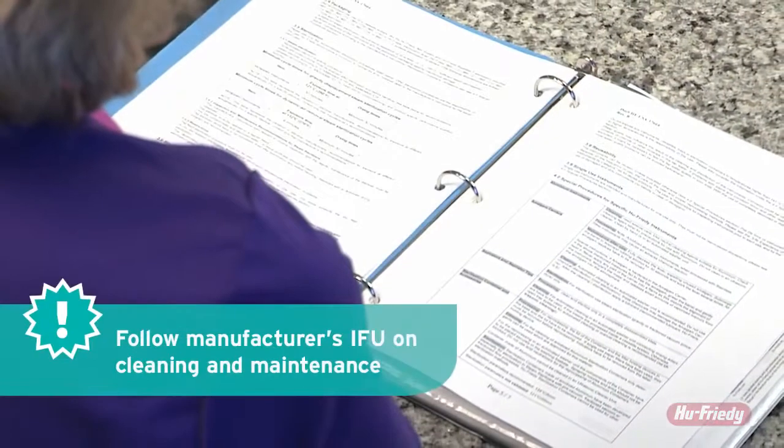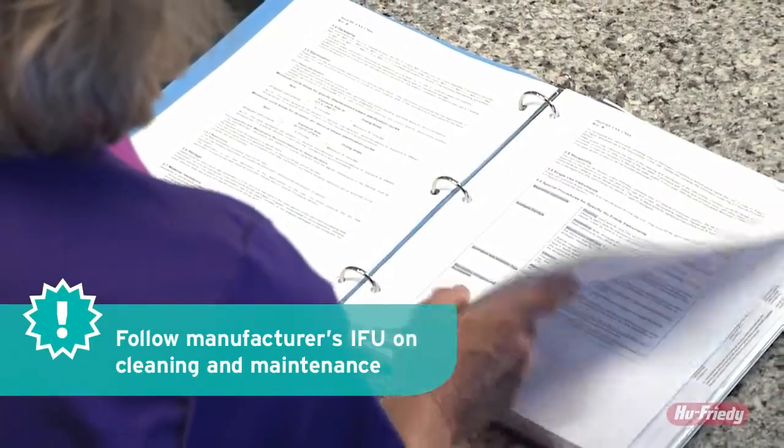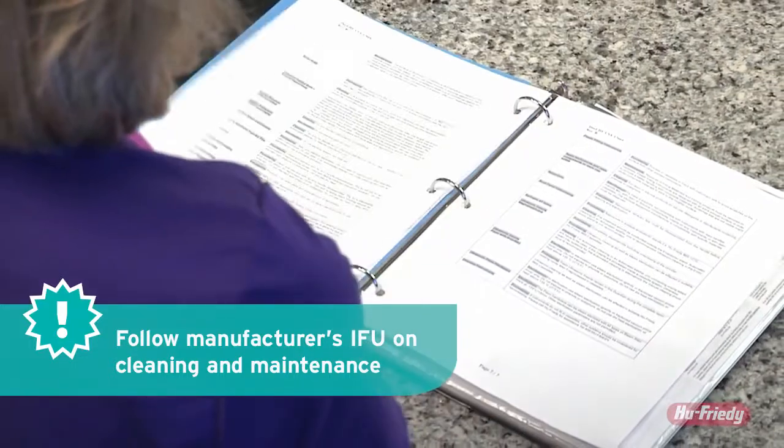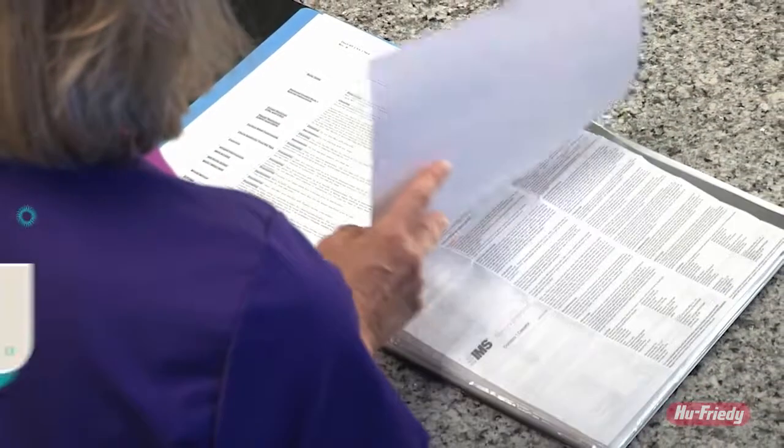Follow manufacturer's instructions for maintenance of the autoclave unit. There may be daily, weekly, or monthly maintenance needed.